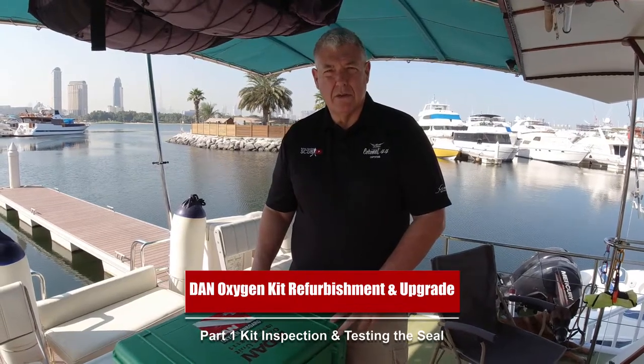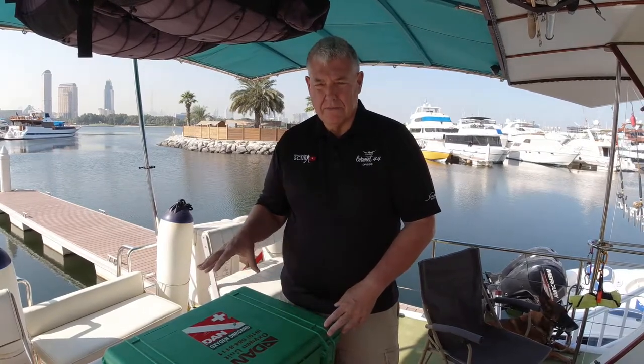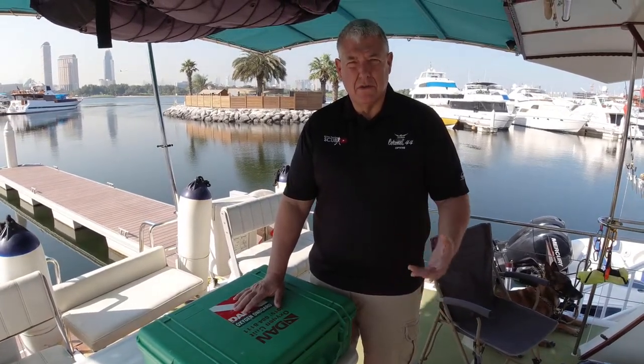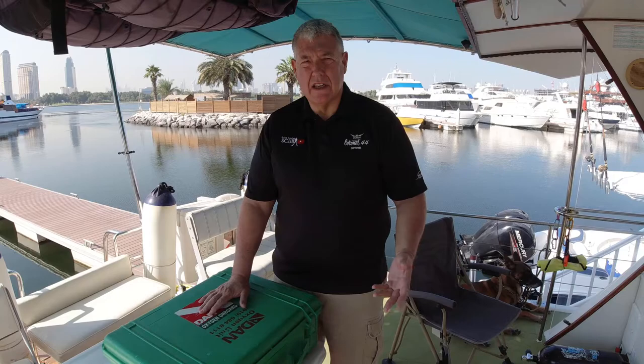The purpose of this video is to show you how to get this back into good usable condition, give you some tips on how to store and use it, and when you should do some maintenance. I recommend at least once a year you should do what I call a service and upgrade to the unit — visual inspection of the cylinder, make sure everything's clean, and replace the seals on the box because they are notorious for leaking if they're not looked after. A lot of dive instructors and dive centres rely on Dan Oxygen Kits as their primary means of providing oxygen to an injured diver, whether from DCI, decompression illness, gas embolism, or even assisting in CPR.